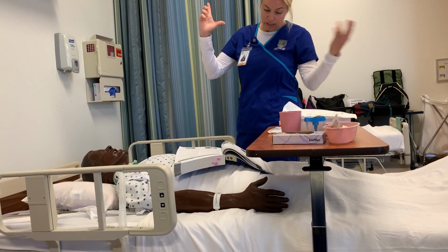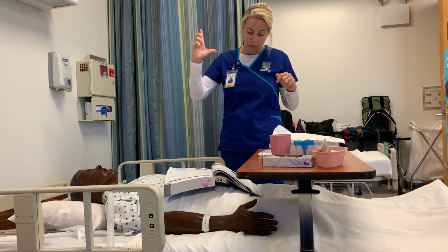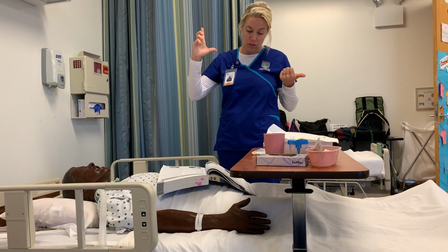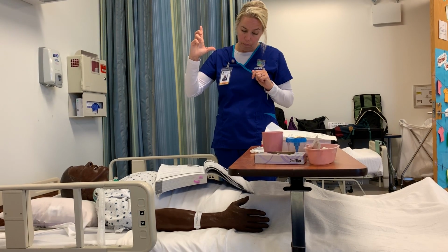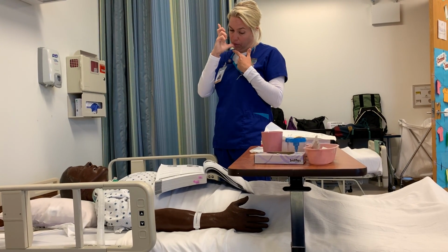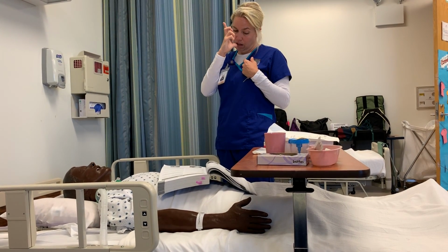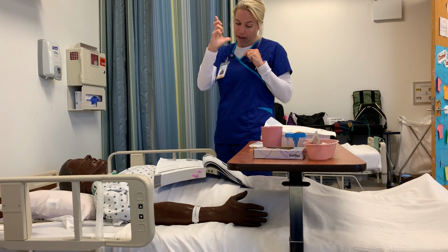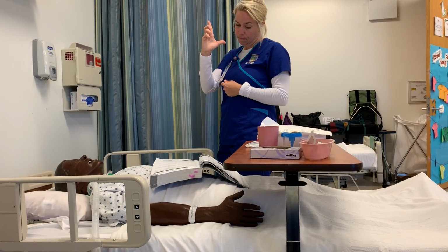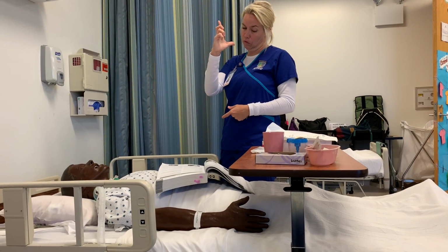I would have the patient sit up or stand, take a deep breath, and exhale. And then I would instruct the patient to position the inhaler in one of 2 ways. One way, they could close their mouth over the mouthpiece with the opening toward the back of the throat and the lips held tight around it. Or another way is that they could hold it in front of their mouth about 2 to 4 centimeters.